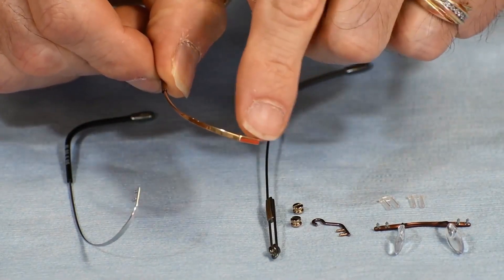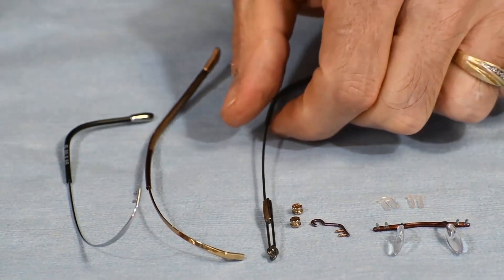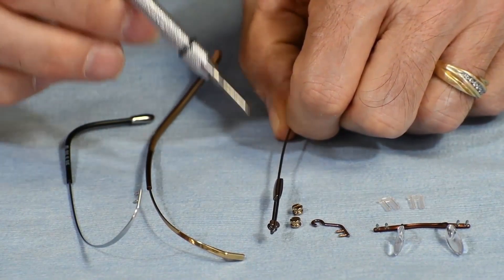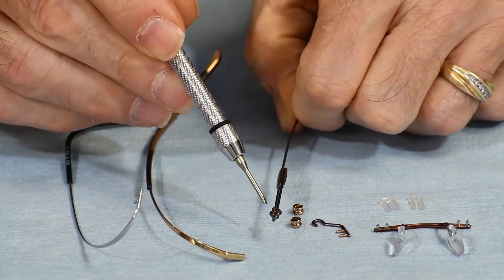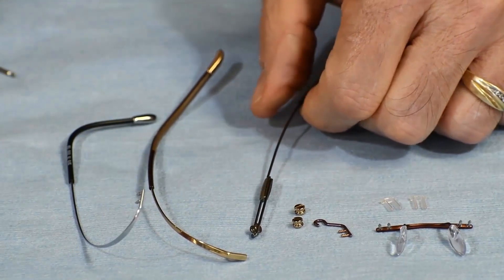The more recent ones are a little bit thicker on the outside, making them a little bit stronger. There are several different ones with hinges. I'm going to show you the one that actually has a disc and a trim piece. Silver and gold are the two colors, and it actually mounts right inside there, with the trim piece connecting as such.